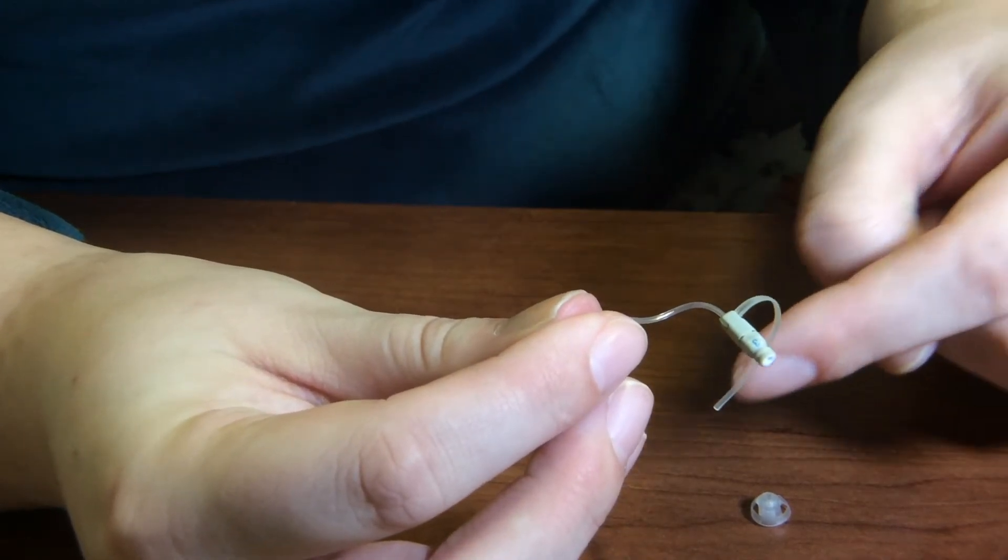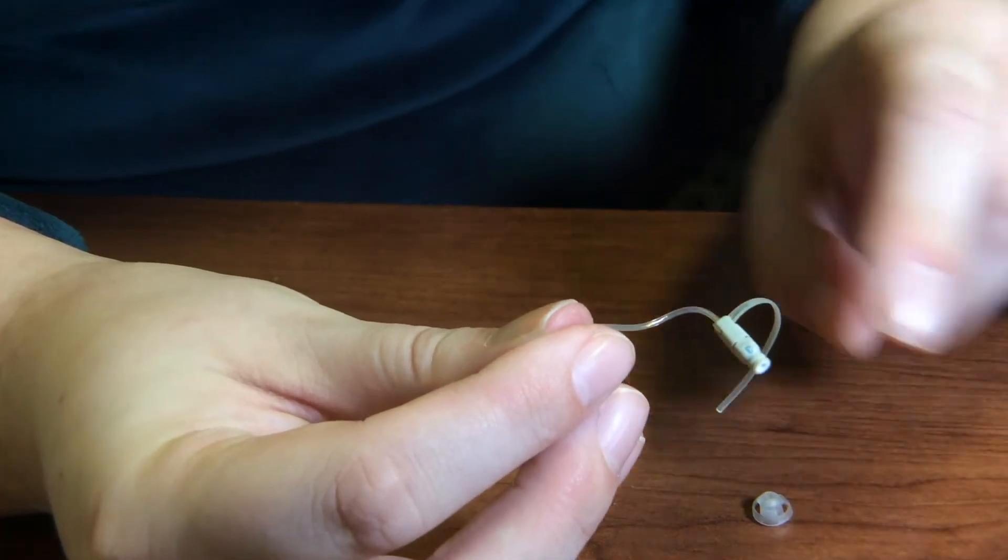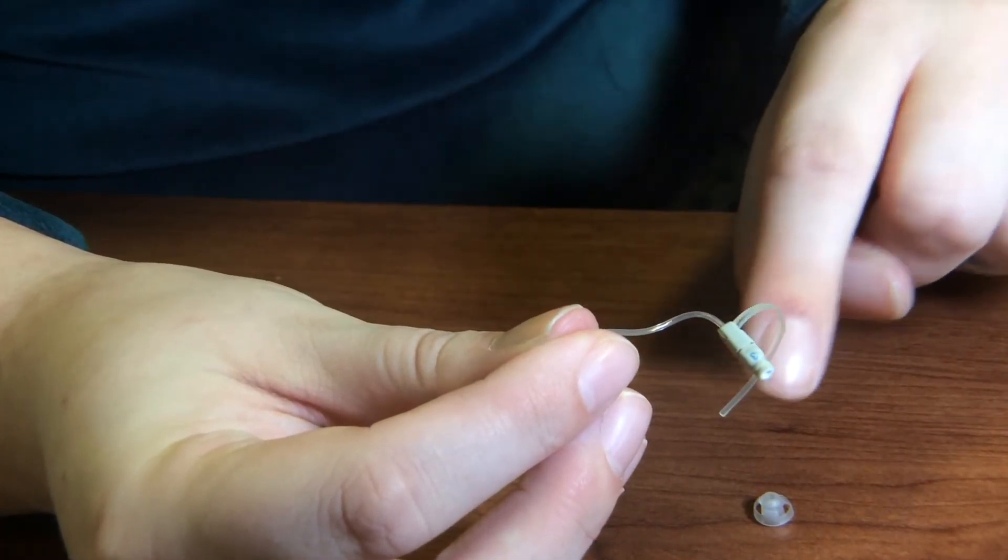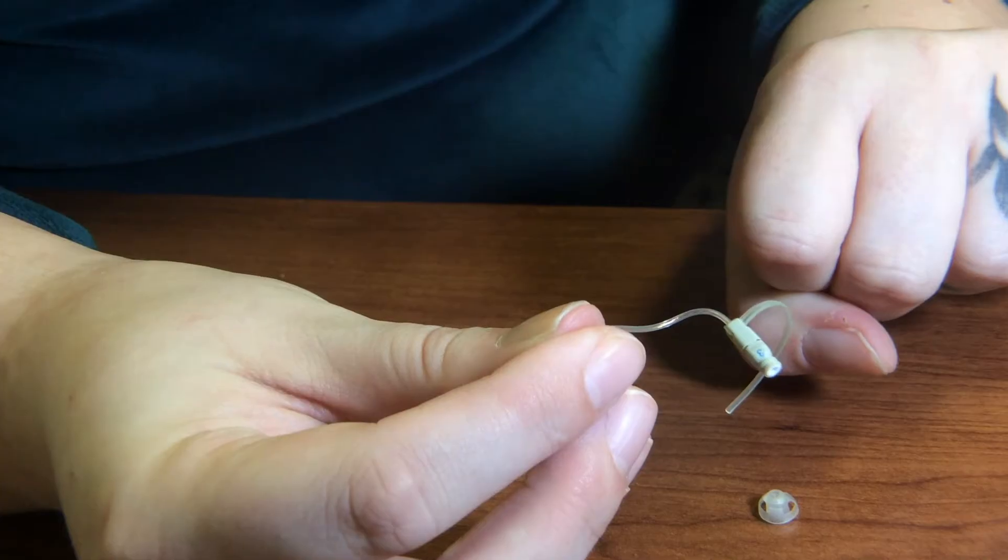This one has what we call a retention cord. You just want to make sure that the retention cord is appropriately molded for the patient's ear.